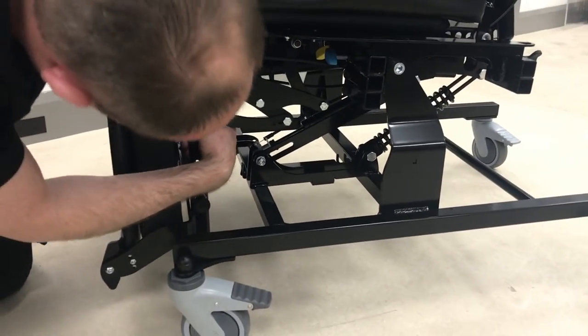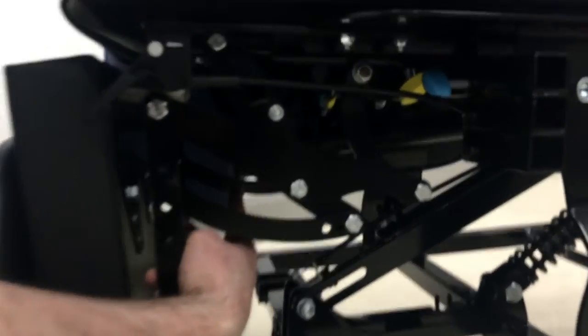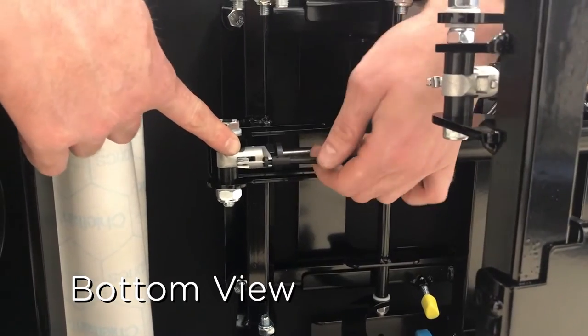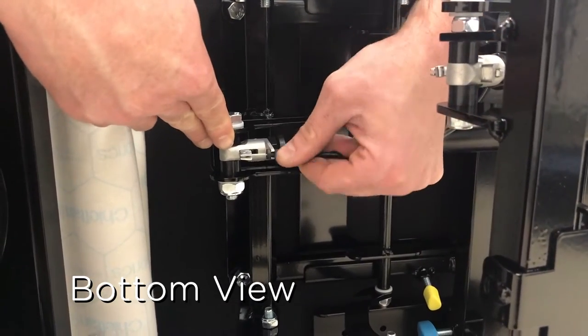So on the inside here, you can see there's a wee silver fork like cable. And the cable is plugged into it. So I'll just disconnect this one just to show you how to attach it.